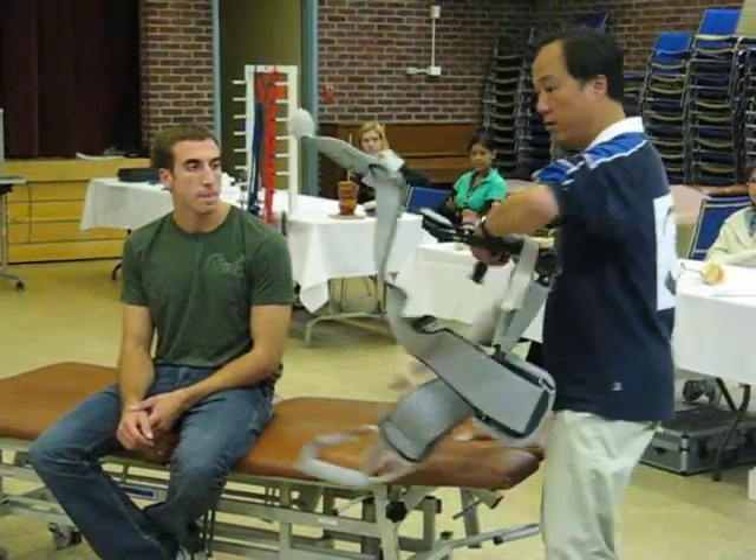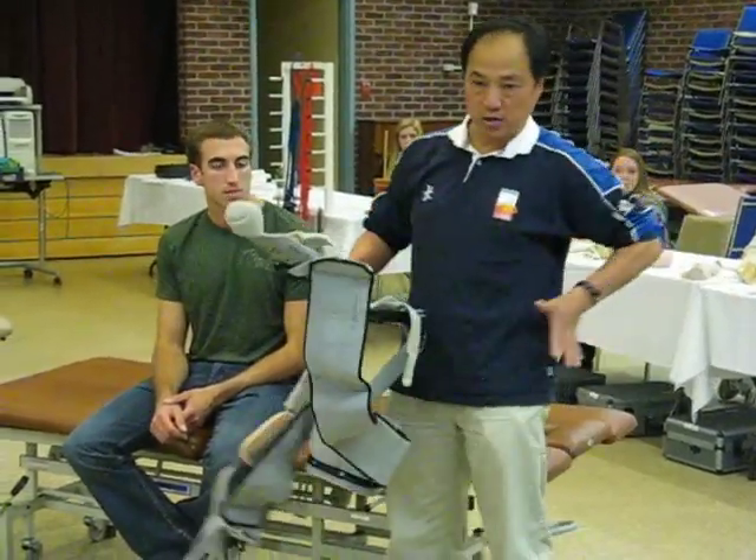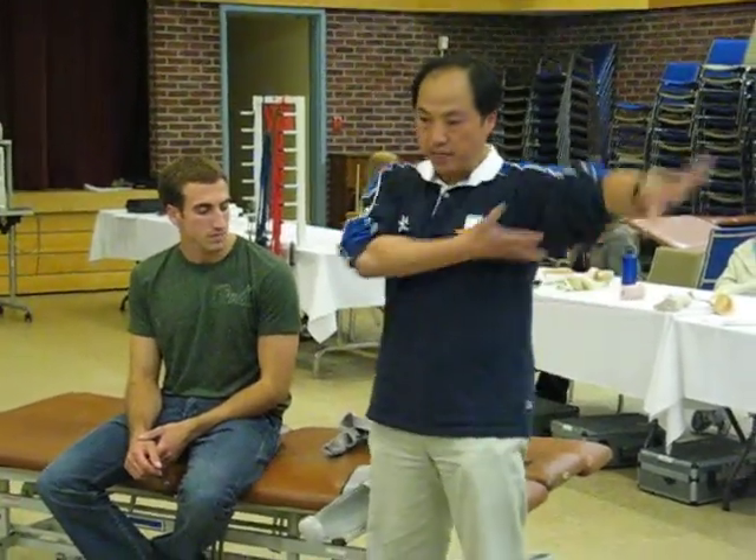Because you can modify it — this one can change. The key thing is you need the support from your pelvis. Because, think about the arms — the weight of the arm is really, really heavy. So you need good bony support in order to relieve the weight.